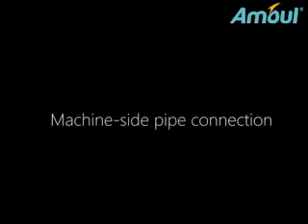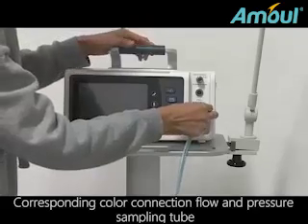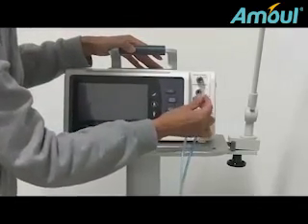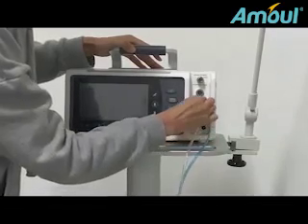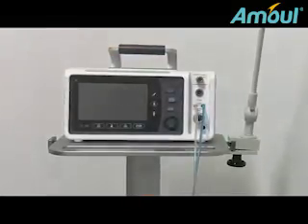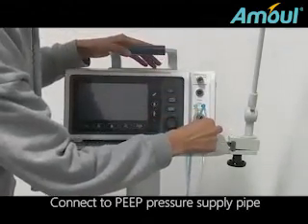Machine side pipe connection. Corresponding color connection for flow and pressure sampling tube. Connect to the PEEP pressure supply pipe.